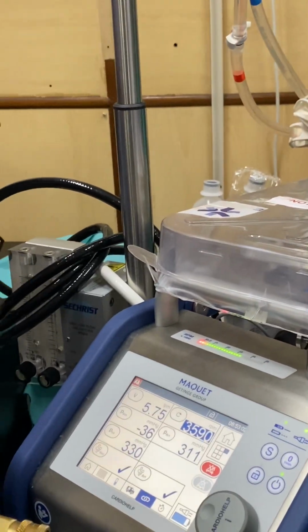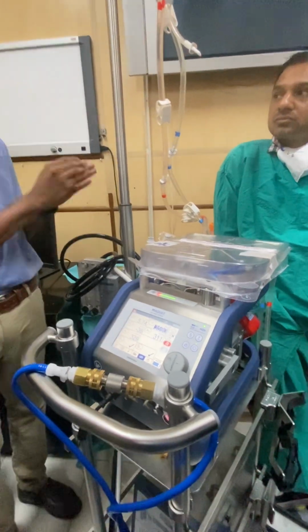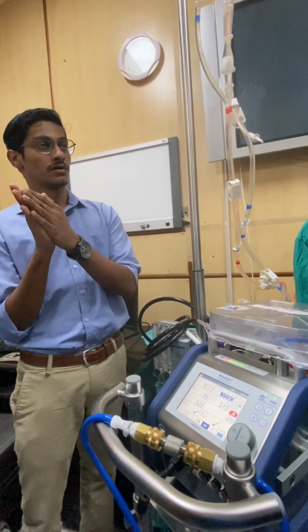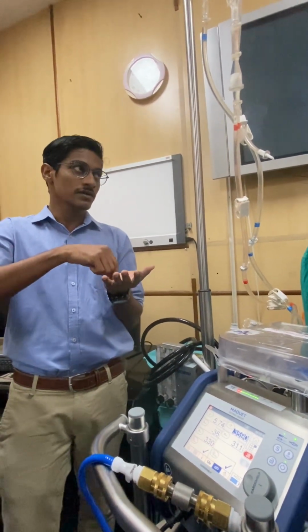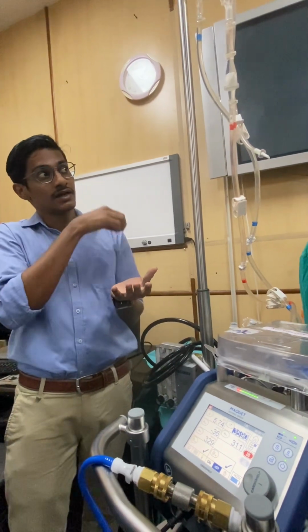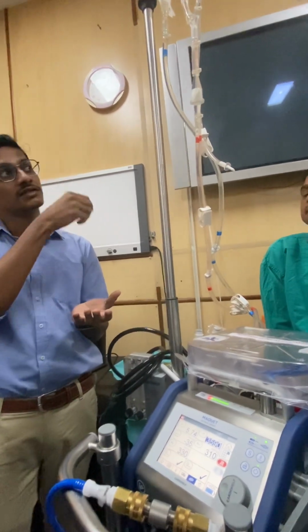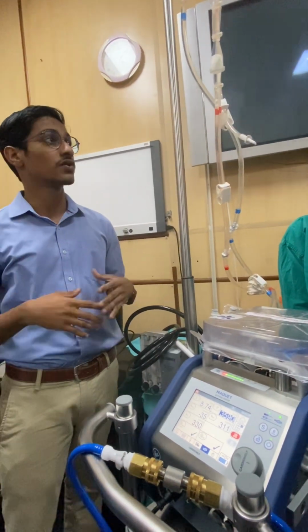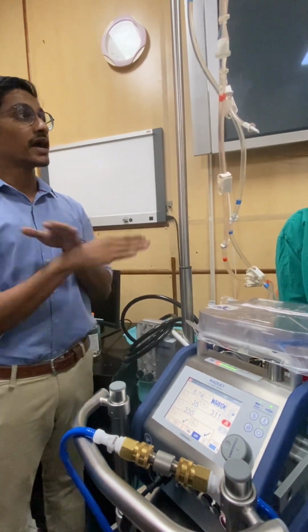If the bubble is on the arterial side, there is no obstruction for the bubble, and the next site is the patient. Now if you look at a venous bubble, it is coming from the venous line. It has to pass the pump. It has to pass the oxygenator. If we have opened it up, there is a chance that it can go from there. So it is not a very big issue or an urgency. In such a situation, we don't want to stop the pump. What happens when we stop the pump?